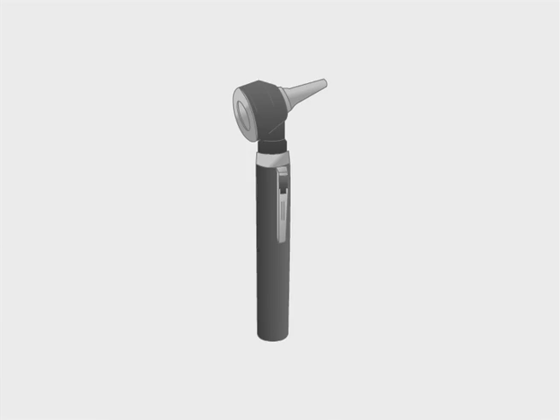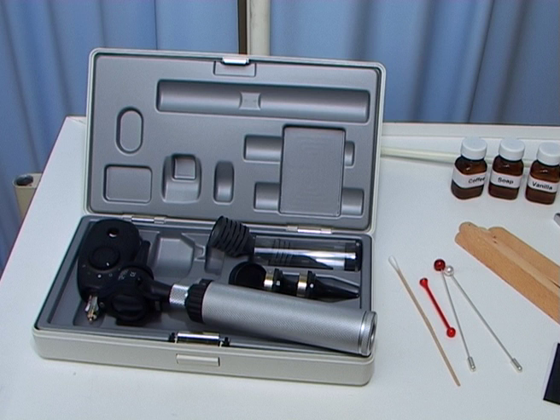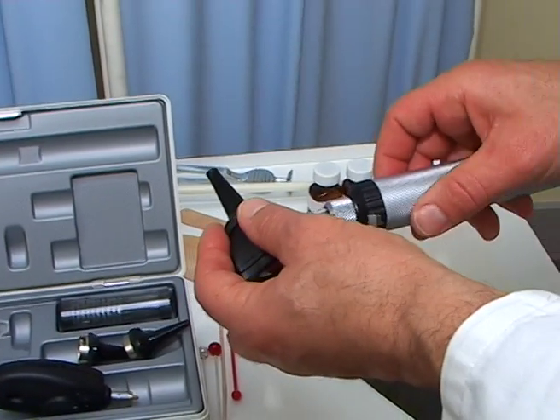Now let us explain the use of the otoscope. Together with the ophthalmoscope, it makes up the diagnostic kit. The handle may be the same as that of the ophthalmoscope and normally houses the power source. The head is simple, consisting of a light source, a magnifying lens, and an exchangeable earpiece or speculum.